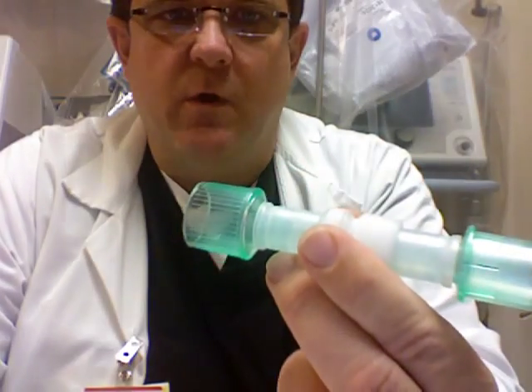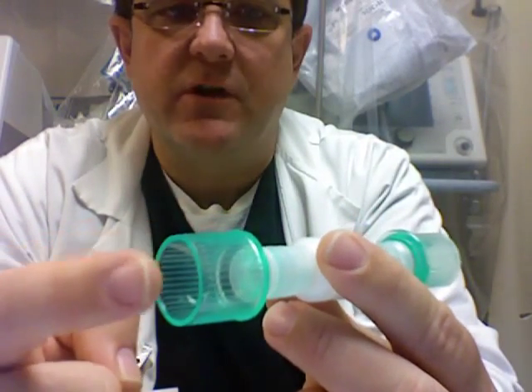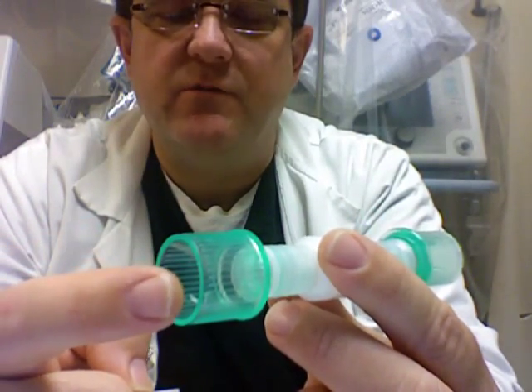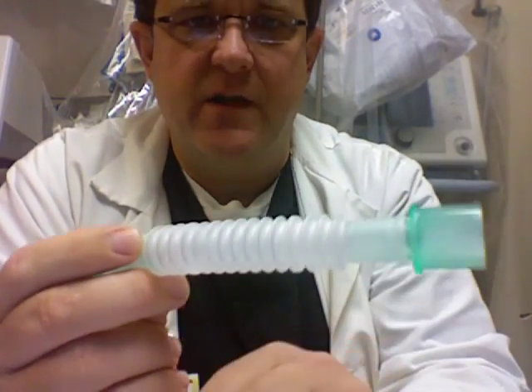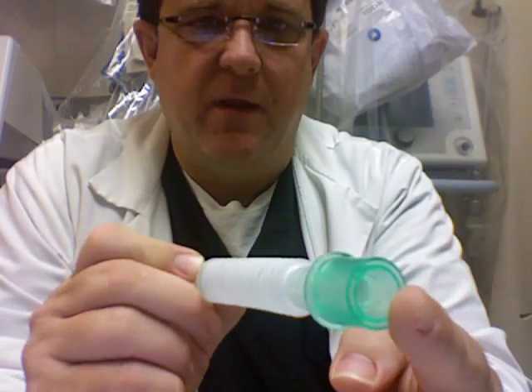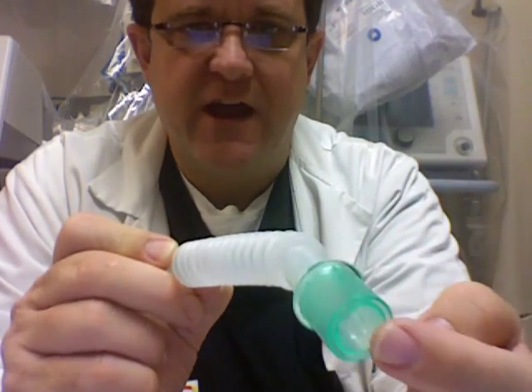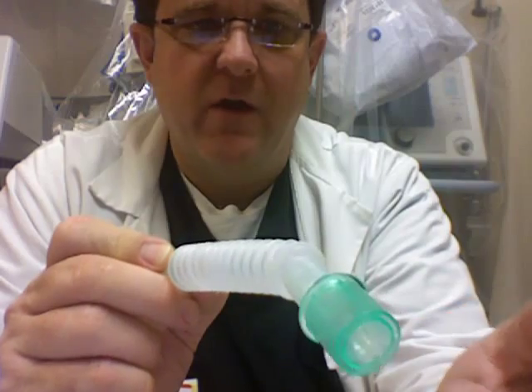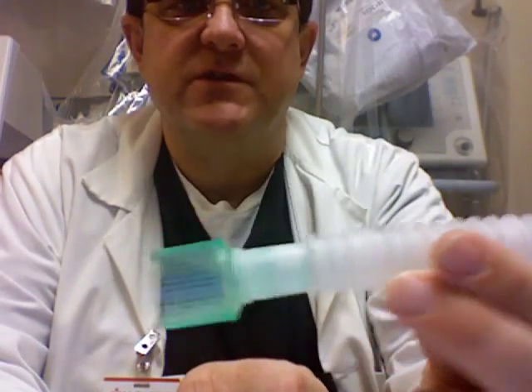Finally, here's one more piece that makes the transition from circuit side — 22 millimeter. This is actually a 22 millimeter ID female, and it's an expandable device that on the other end will adapt to 15 millimeter female, so it can attach to the airway or to the elbow that is then attached to the airway. That's one more transitional piece.